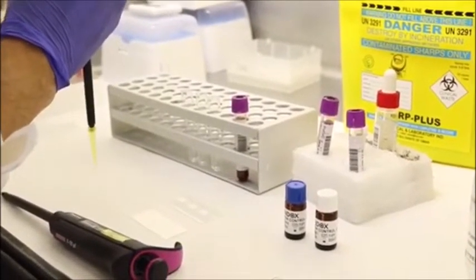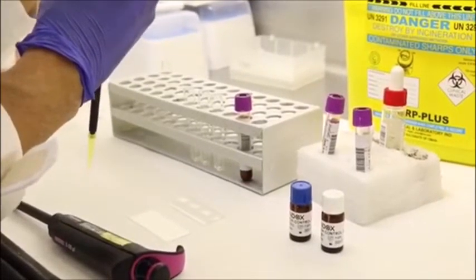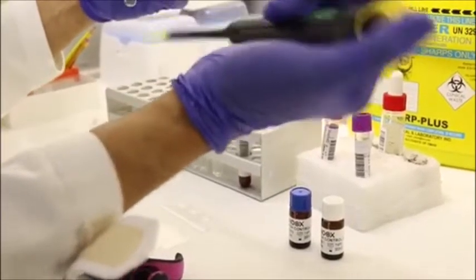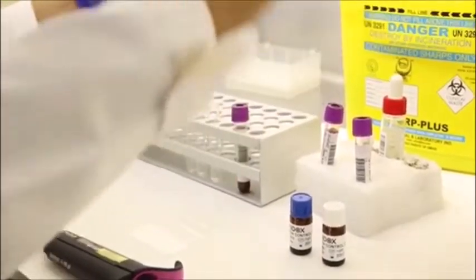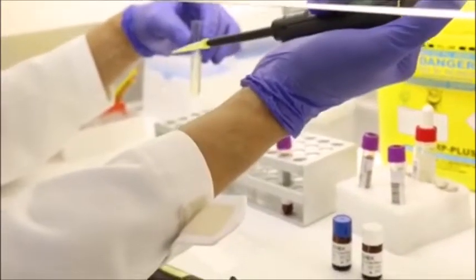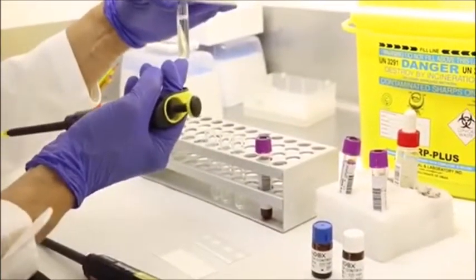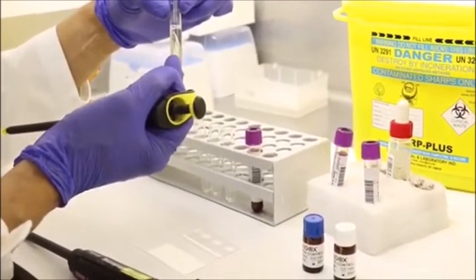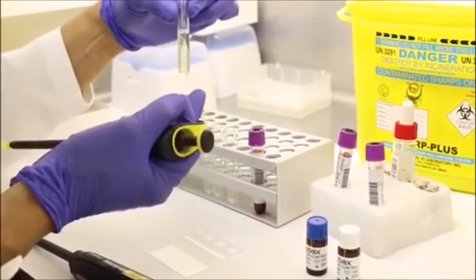So basically, what actually happens inside the red cell is we are trying to create an in vitro environment, where the G6PD enzyme acts exactly the same as what happens inside the red cell. So this particular solution contains glucose-6-phosphate and NADP. Okay, so it is commercially prepared.